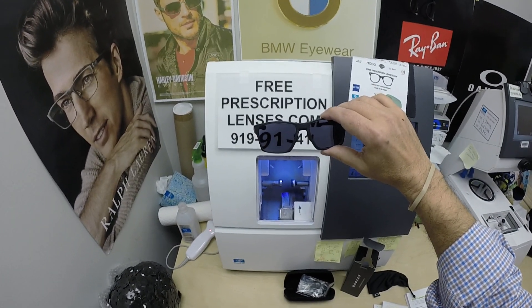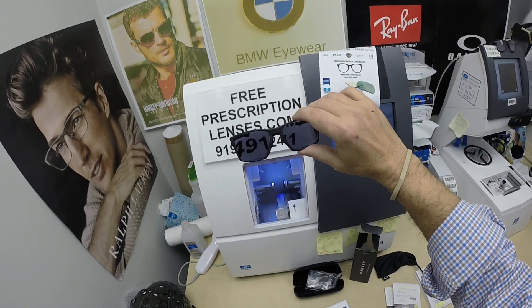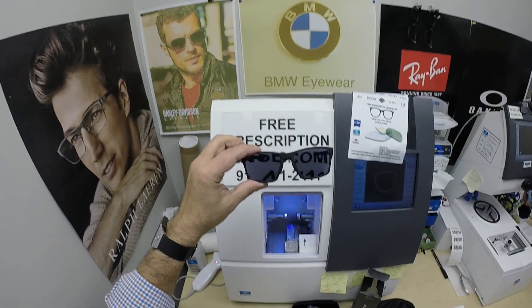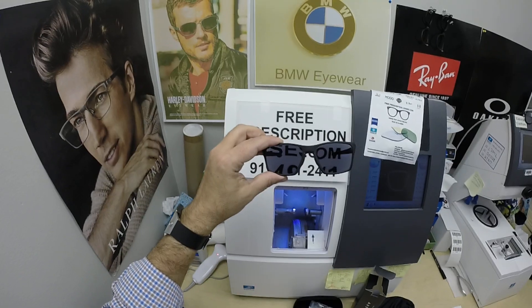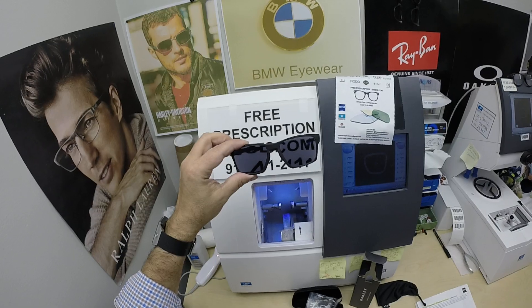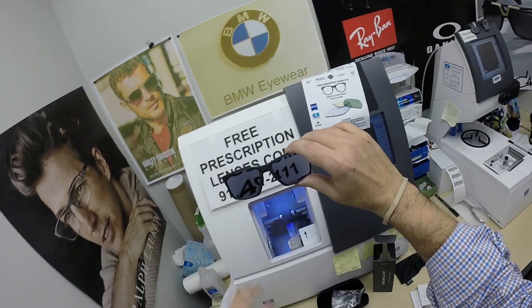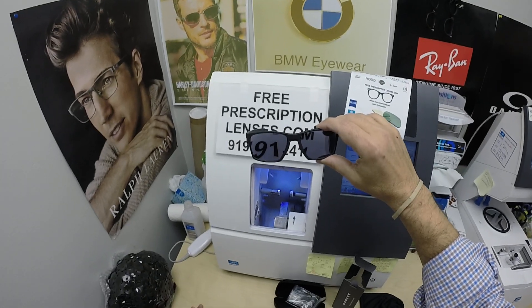As I mentioned, Don is in Pinehurst, Texas. If you live in California, Texas, Louisiana, Arizona, Florida, or if you just want the darkest lens possible, go with the Zeiss photo fusion extra gray. Now the extra gray adds $129. The regular photo fusion gray, brown, green, or blue is $99. The Duravision platinum premium anti-glare coating is $99. Someone grab a calculator and figure that all out. All of that is tax free with free shipping anywhere in the US.